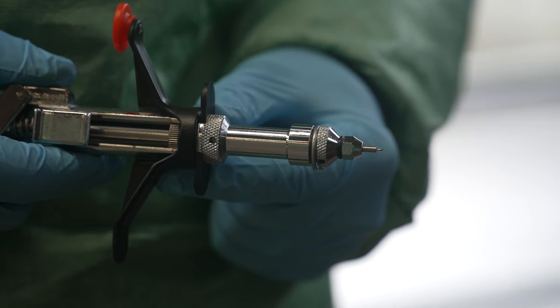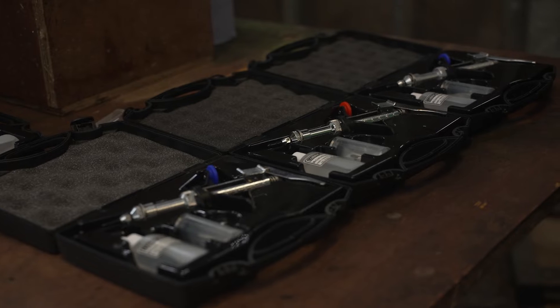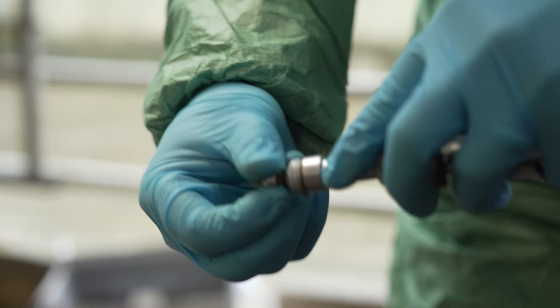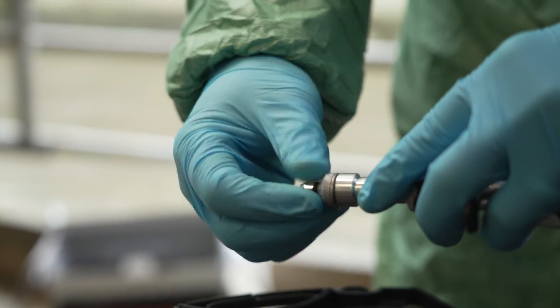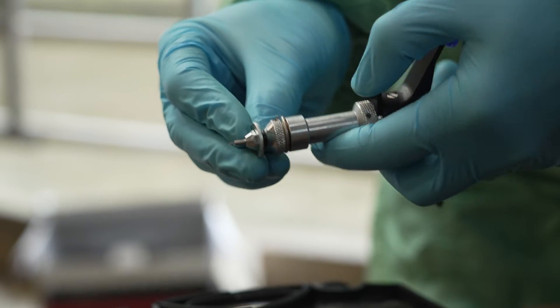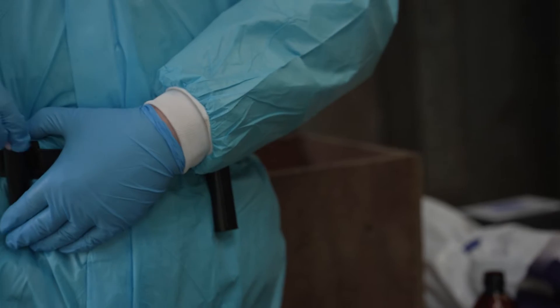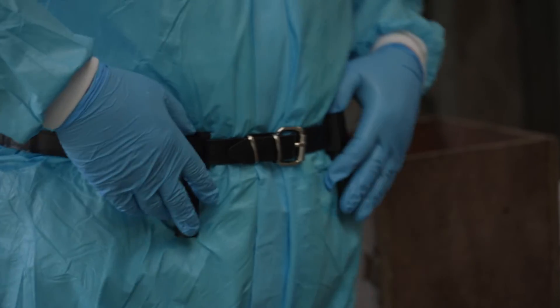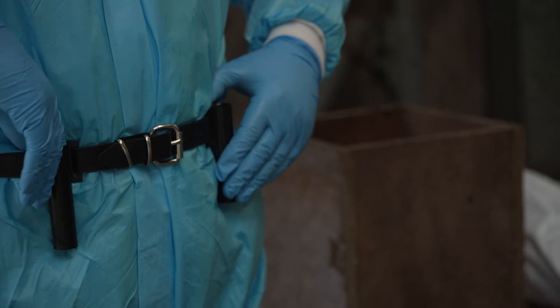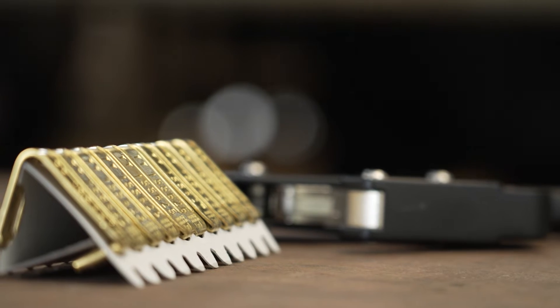Syringes must be individually marked with colored thumb knobs to distinguish between those used for avian tuberculin, marked red, and those used for bovine tuberculin, marked blue. The needle in use should protrude between two and three millimeters to achieve a successful intradermal injection. Spare needles, adapters, spanner, and identification thumb knobs must be carried at all times. Syringe holsters containing cotton wool and either methylated or surgical spirits must be used for sanitation of the needles between animals. No other spirits can be used.